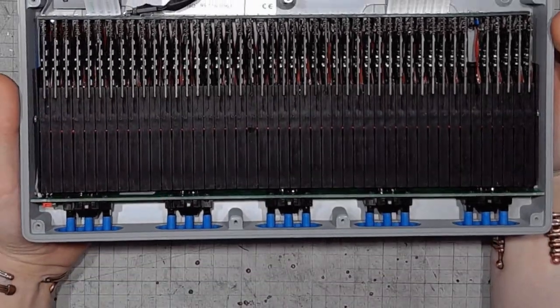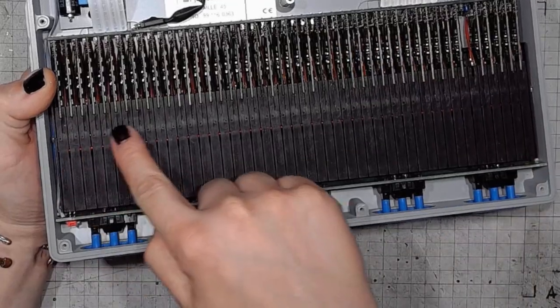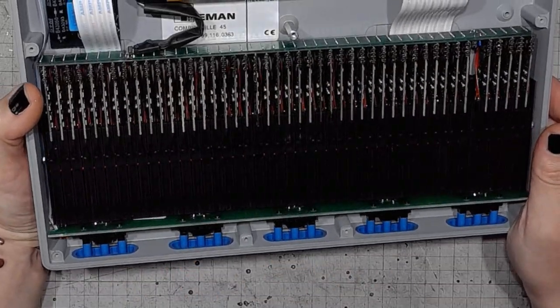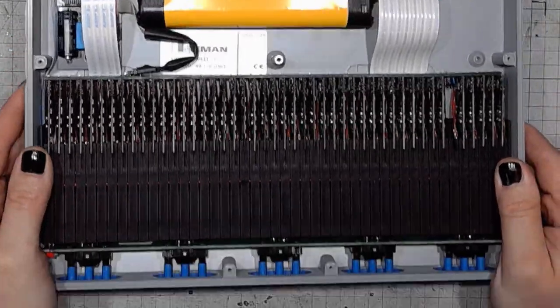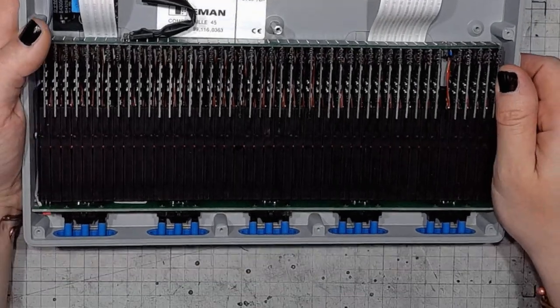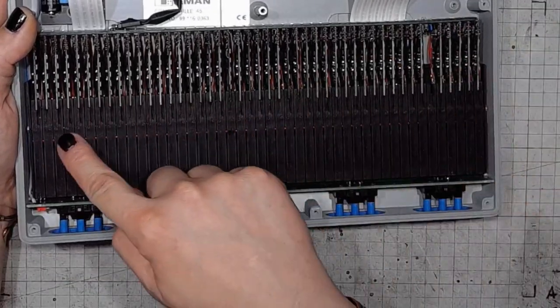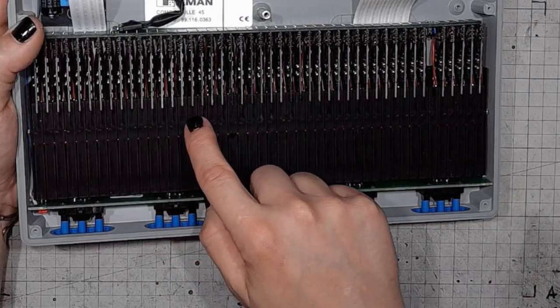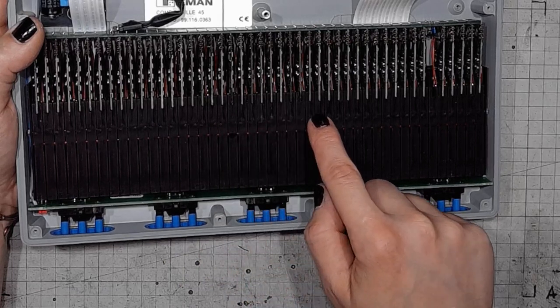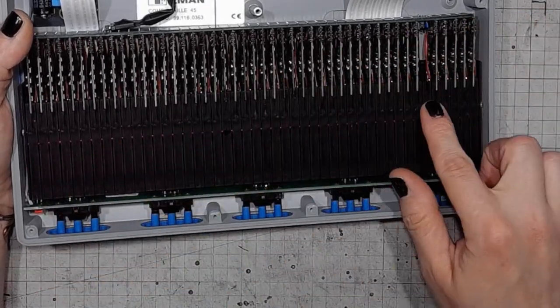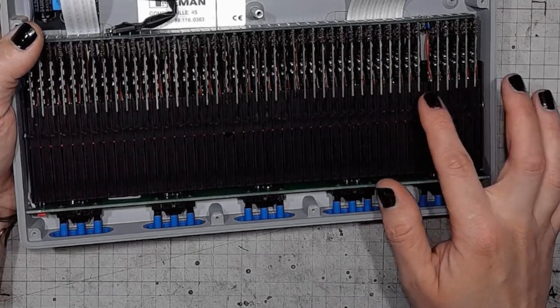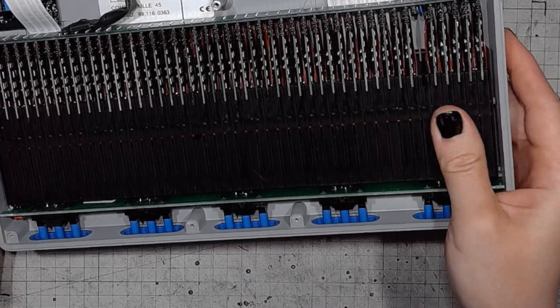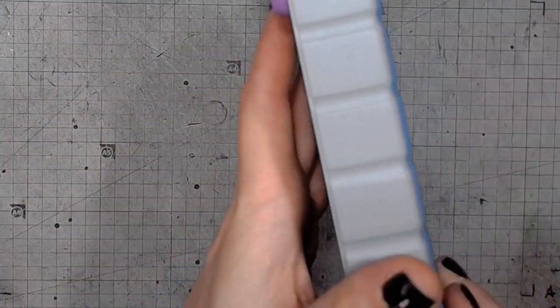And what does this thing of beauty and a joy forever consist of? You might ask. This block is very intriguing because this is a piezoelectric driver. And just look at all those modules, there's so many of them. Like 40 modules here, and from what I read doing some research on this unit, the next five modules are control block, so it is called.